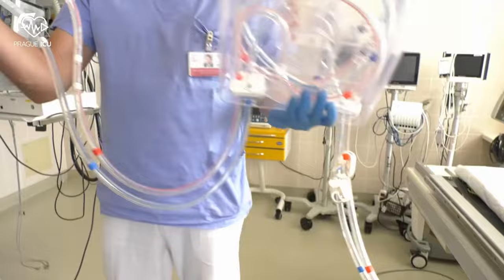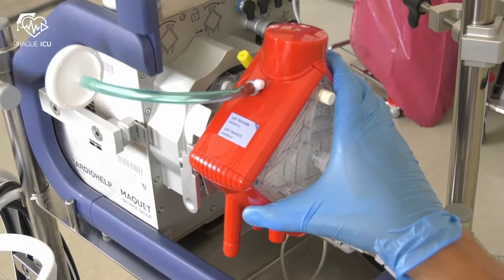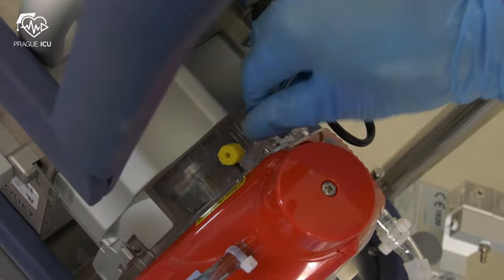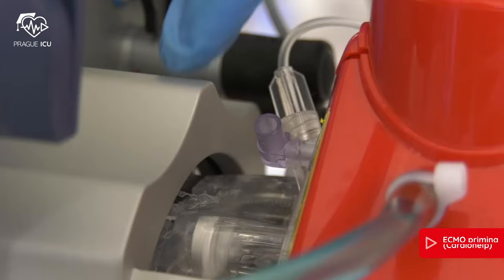This is an HLS module advanced with an oxygenator and tubing system. Attach the module to the Cardiohelp drive by turning it anti-clockwise. Add a three-way tap with extension to the post-oxygenator port and another one to the pre-oxygenator port.